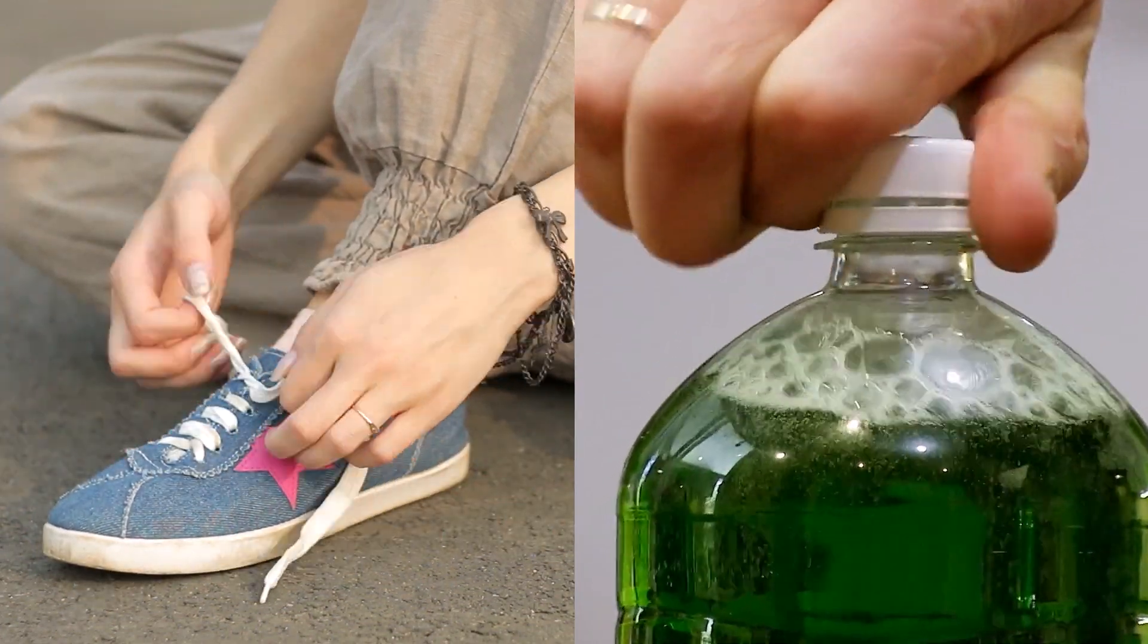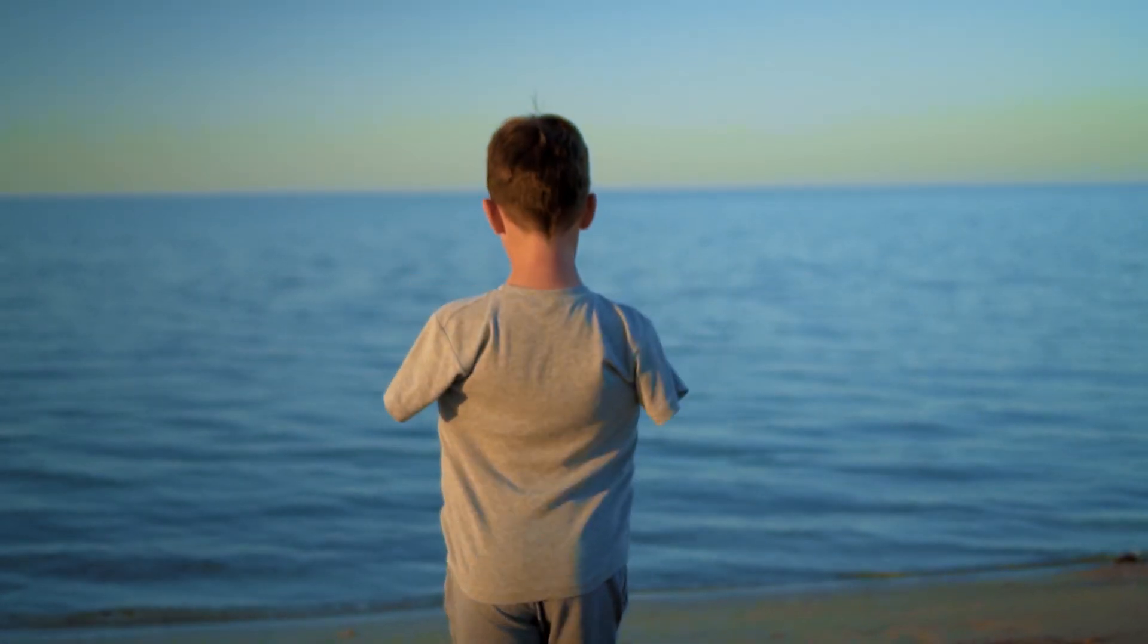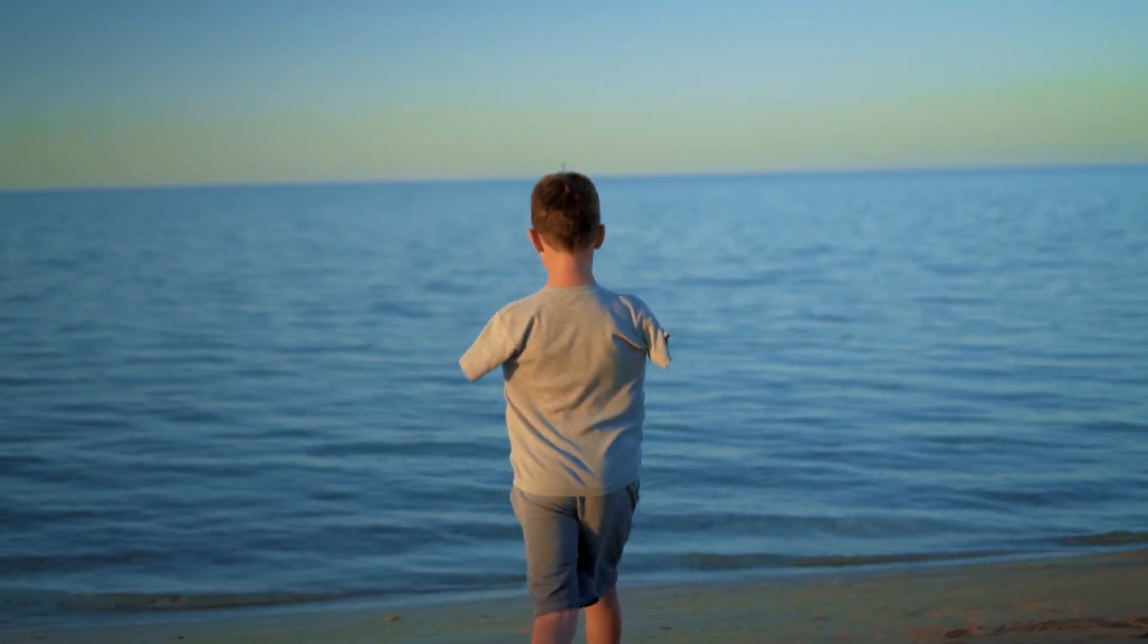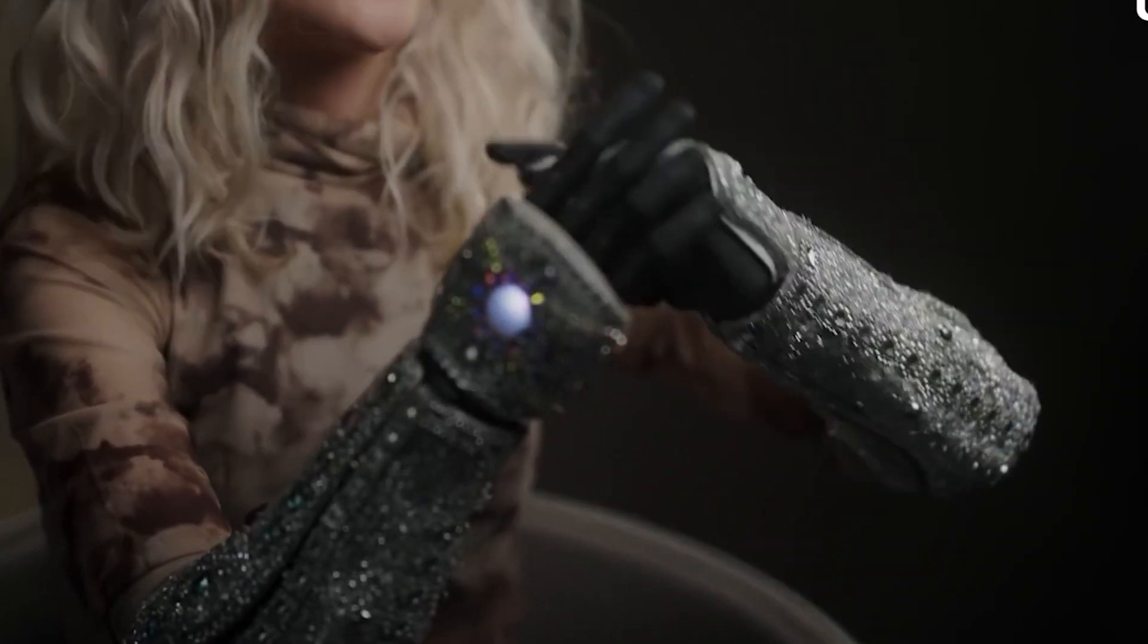When we tie our shoelaces or open a bottle of soda, we do it on autopilot, reflexively. Meanwhile, millions of people all around the world are deprived of this opportunity due to amputated limbs. Only a small part of these people can afford modern, high-quality prostheses.